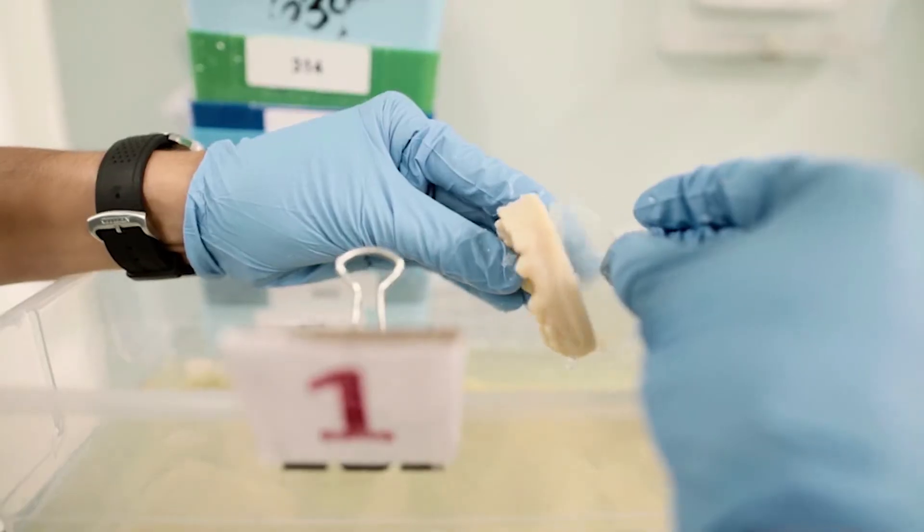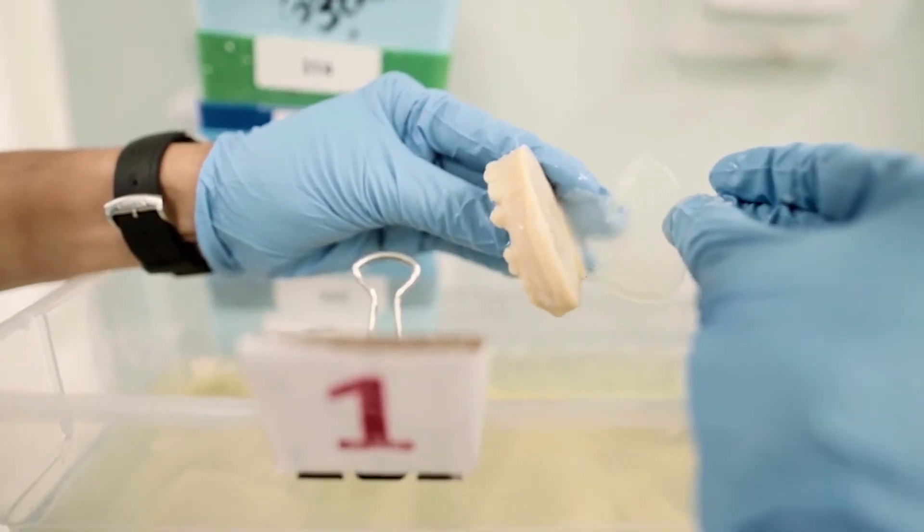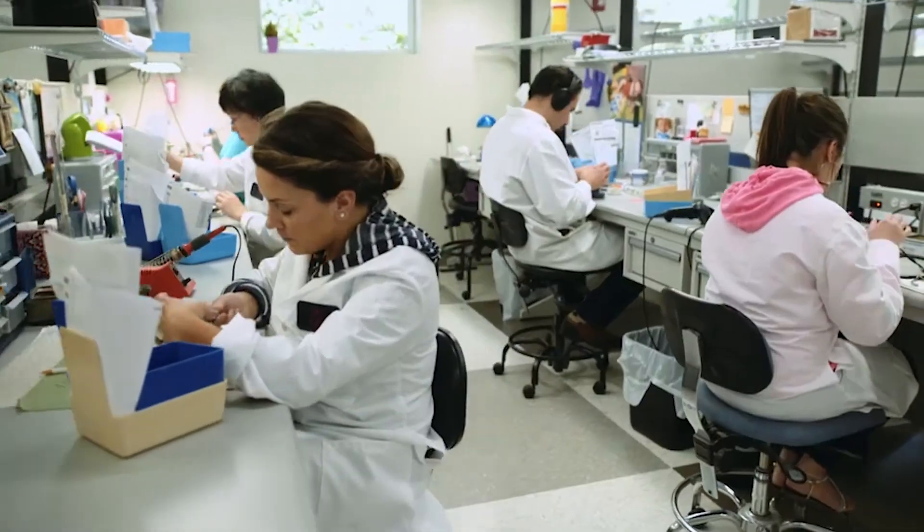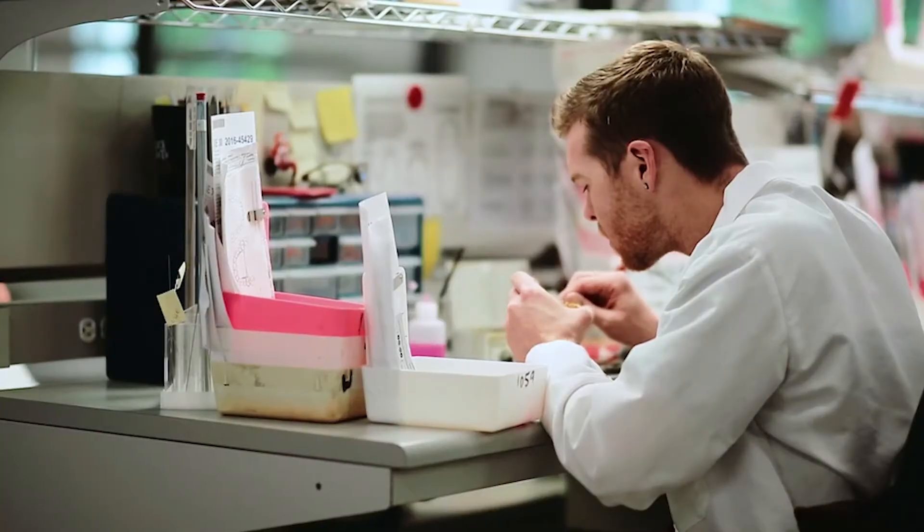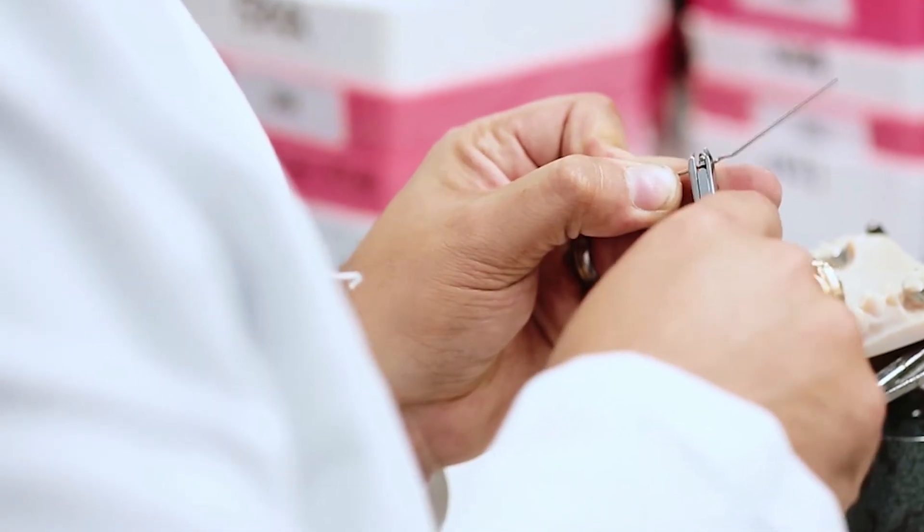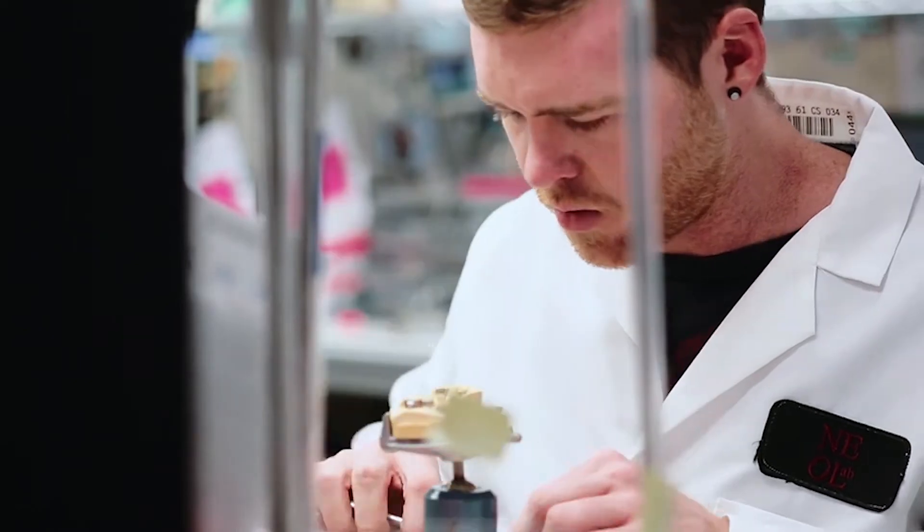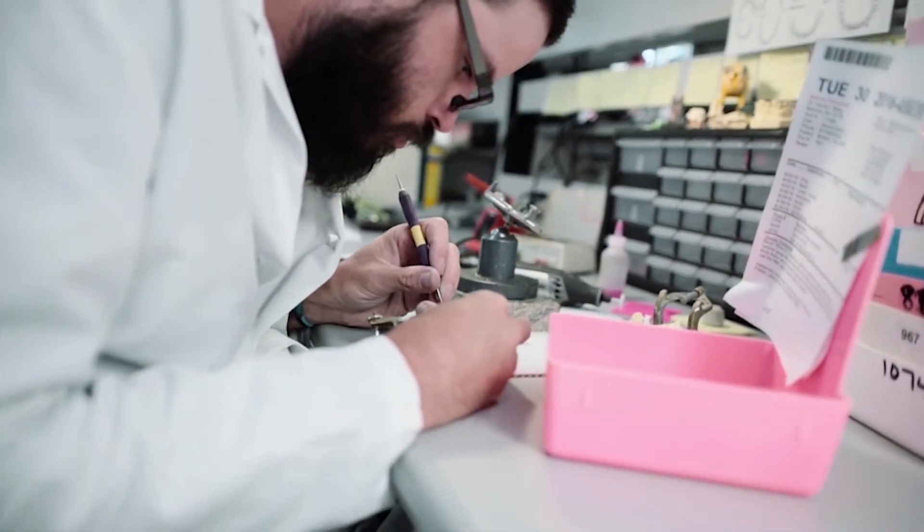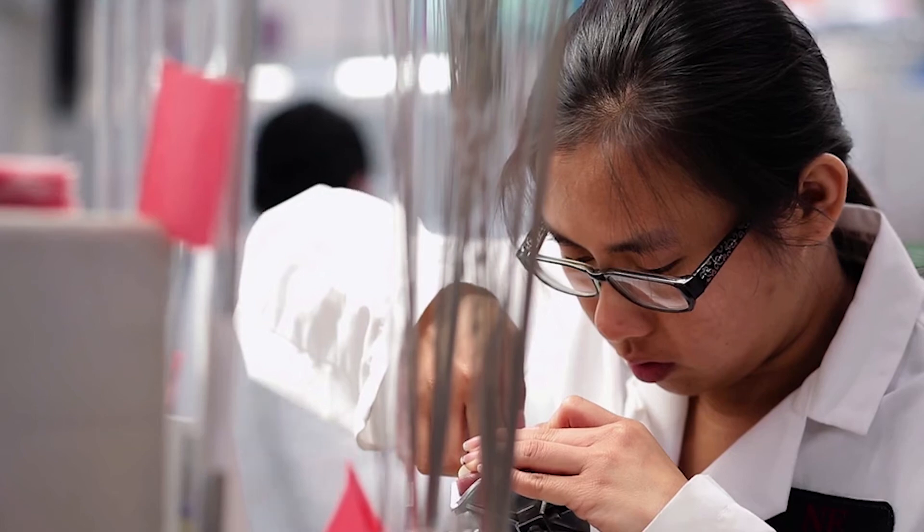We'd enter into a very traditional workflow which has been developed back in 1976. With 3D scans, we can have it uploaded and prep everything right on the model and we can also weld right on the model. The only time that it comes off of the model is when it's completed. And that makes everything more efficient and we can have an appliance turned around as little as five days.